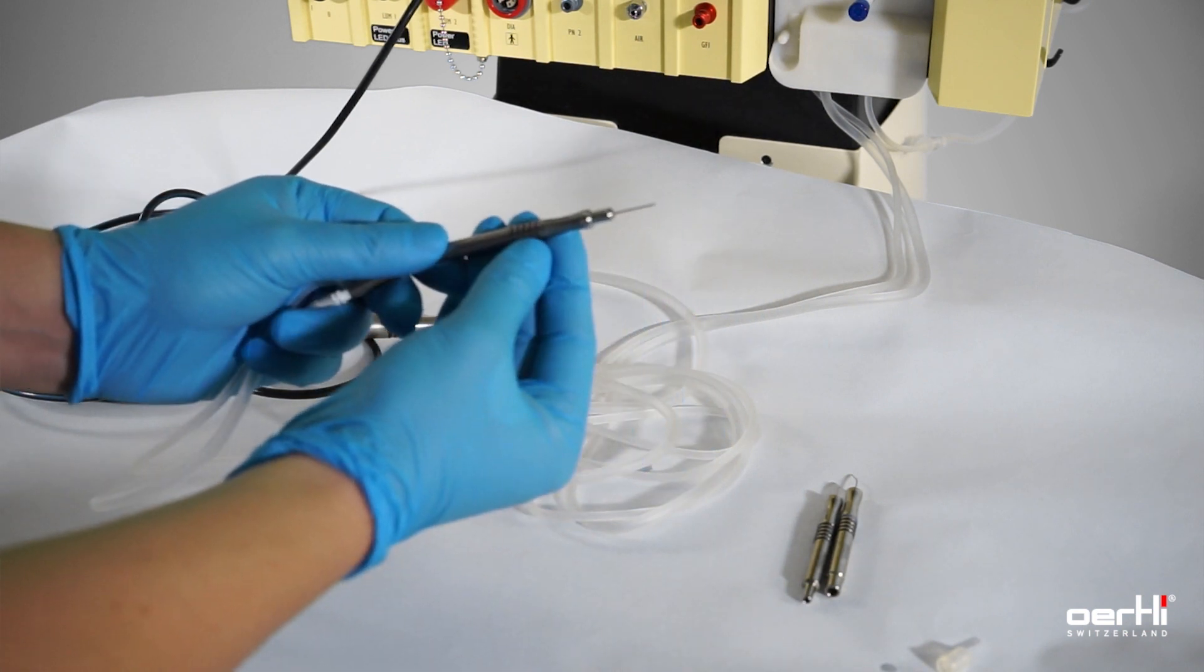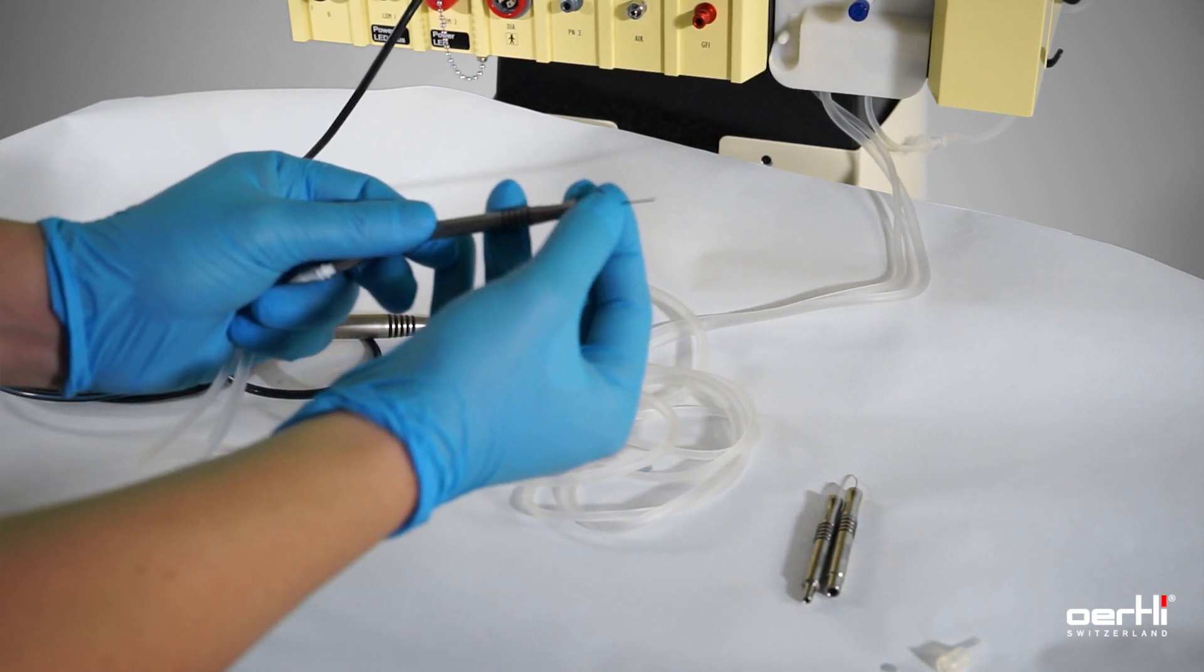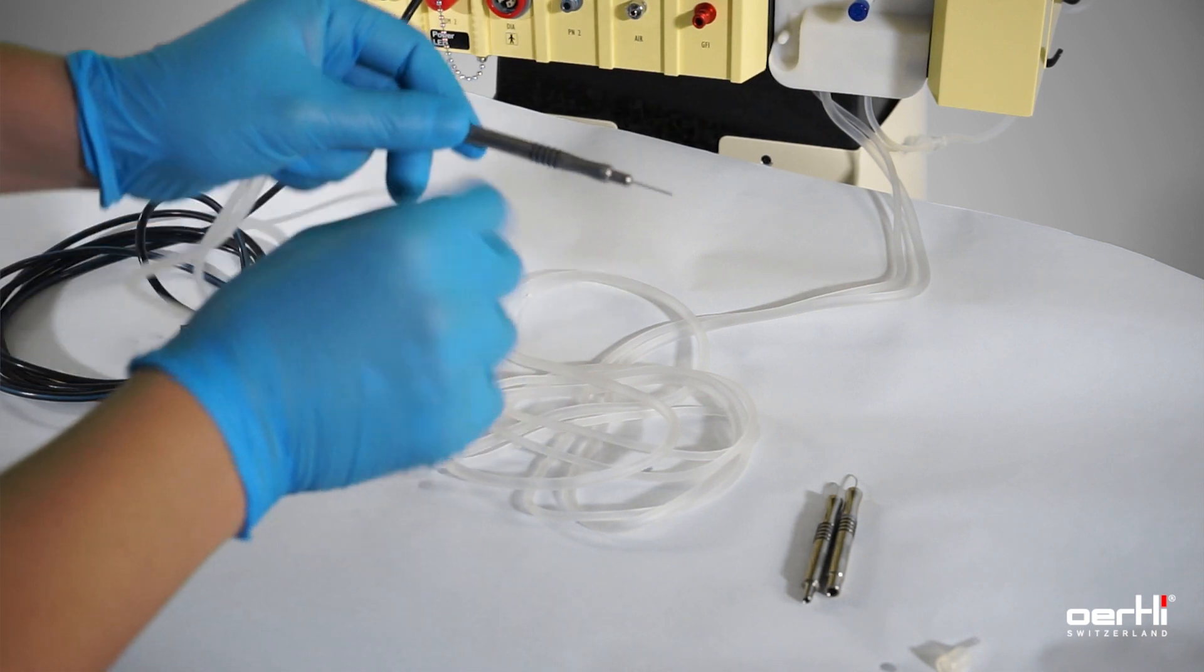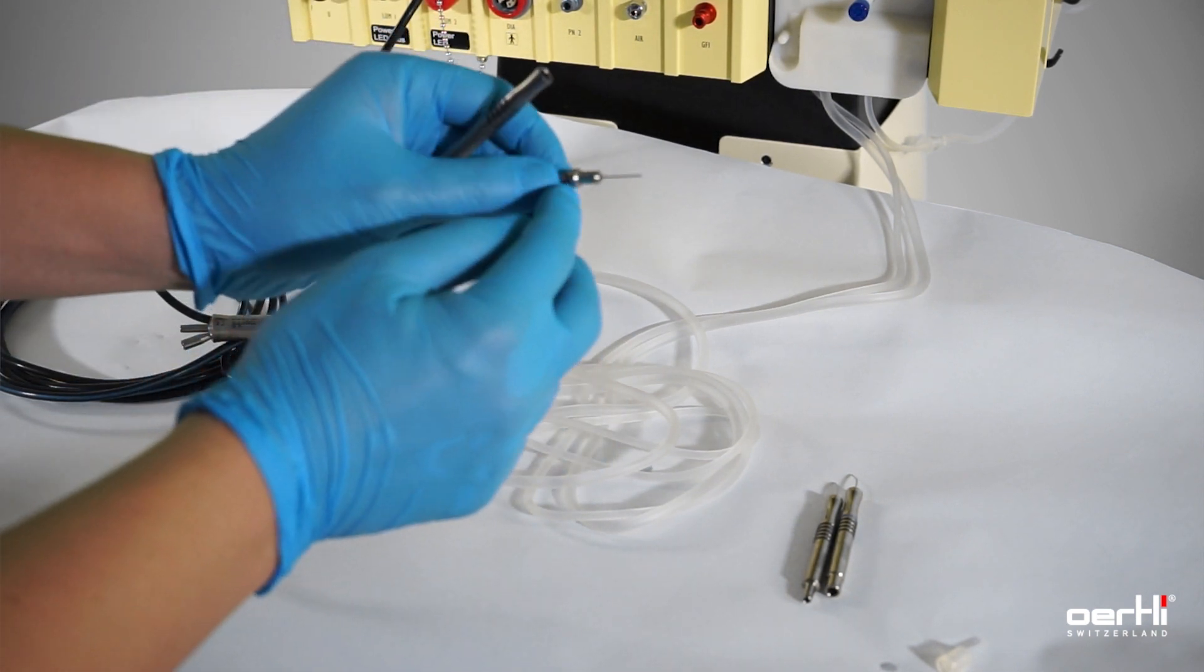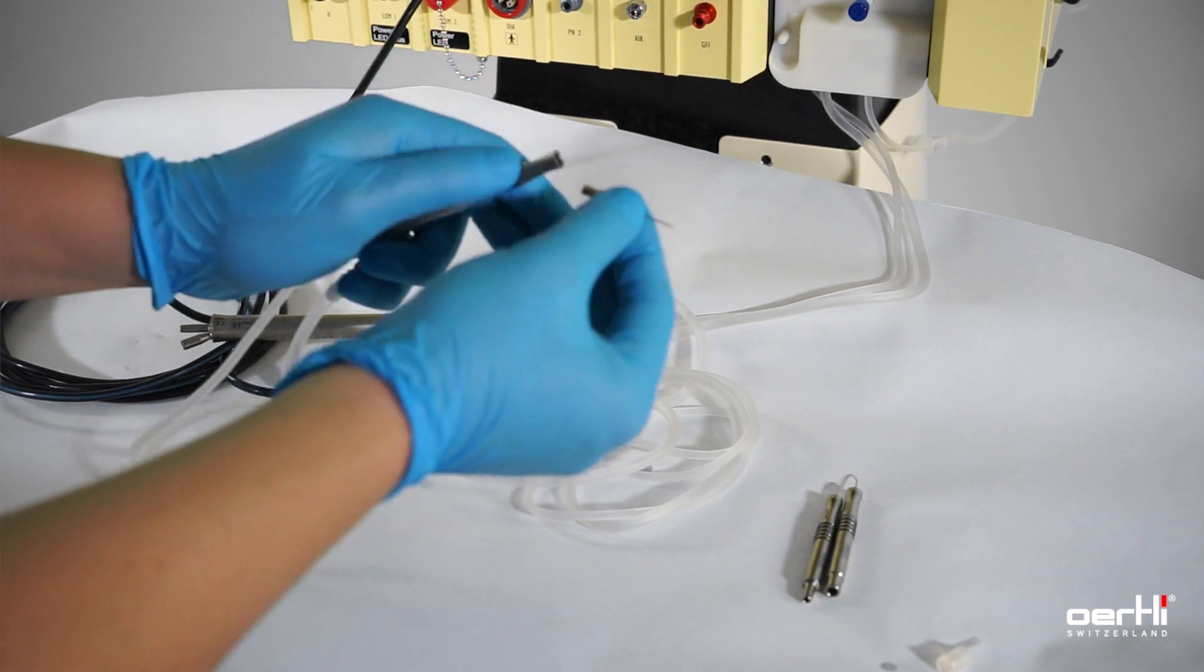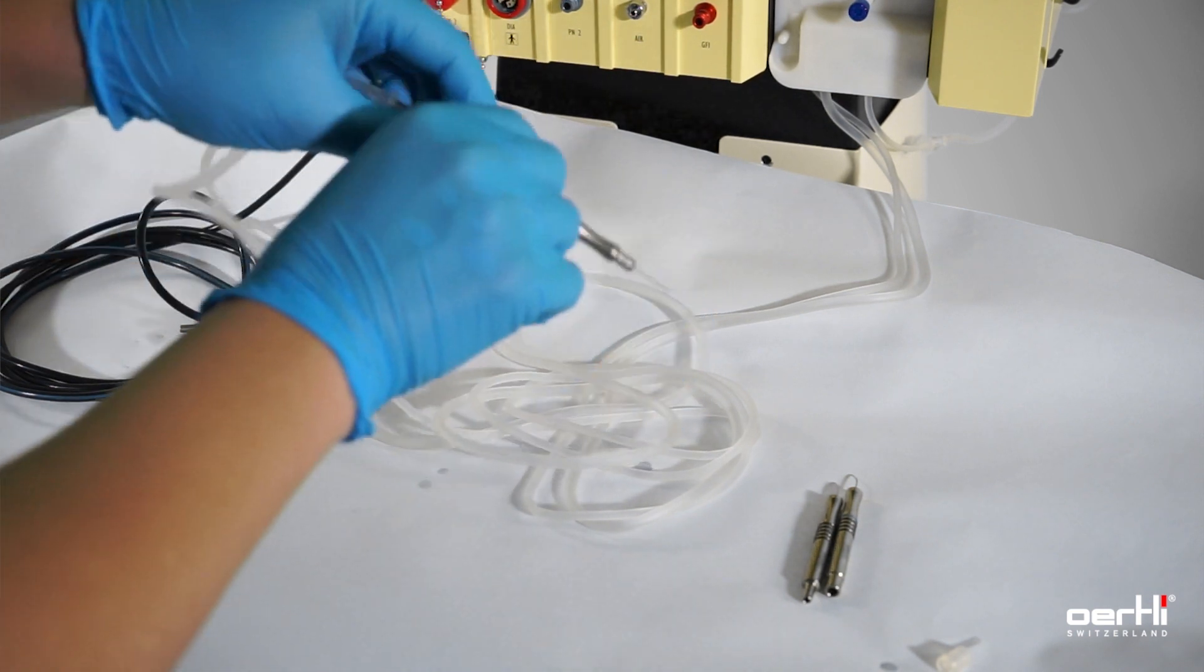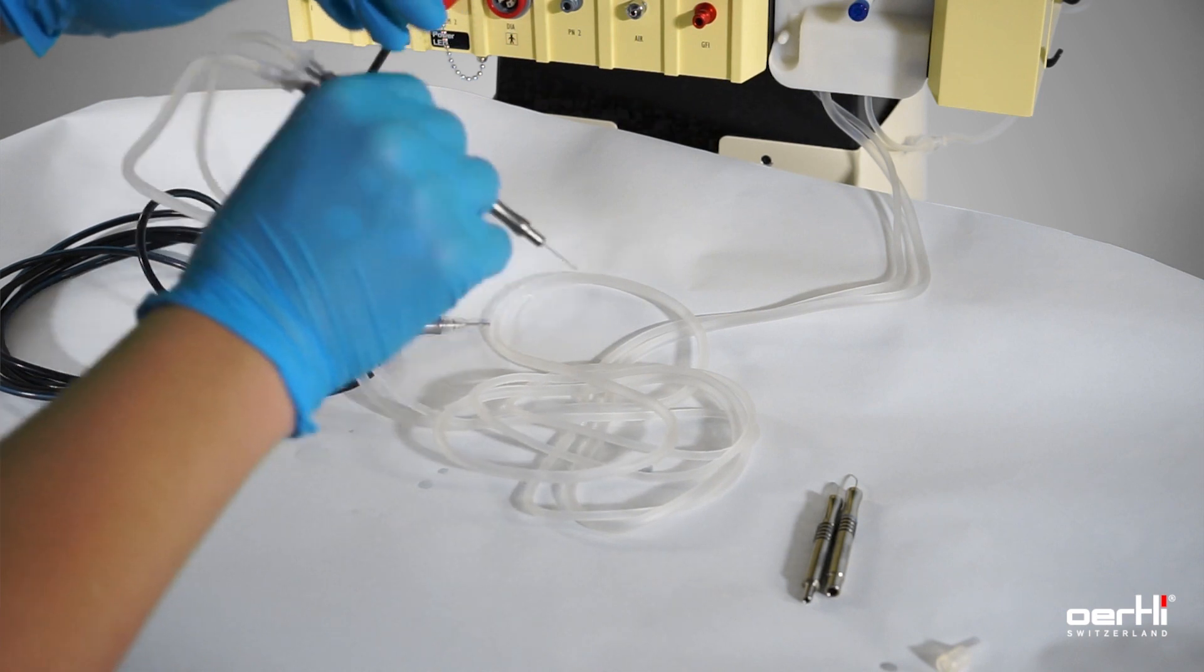Assemble the IA tip, ensure that it's all the way down and that the rings are in healthy conditions. This will prevent losing the IA tip during surgery.